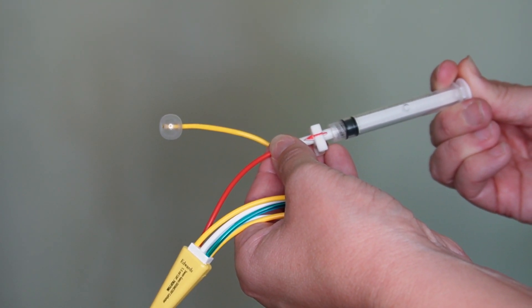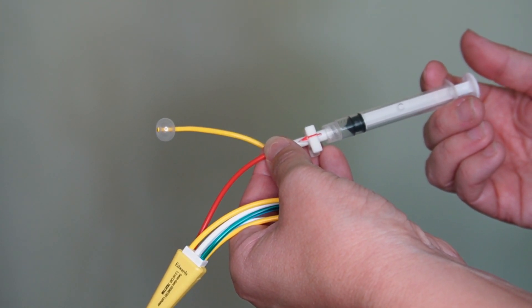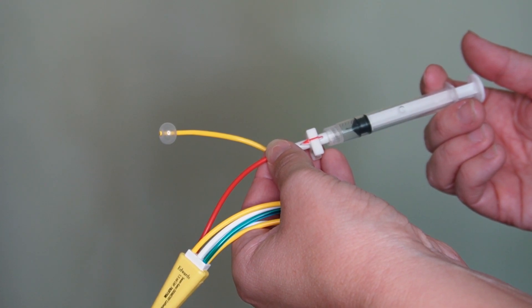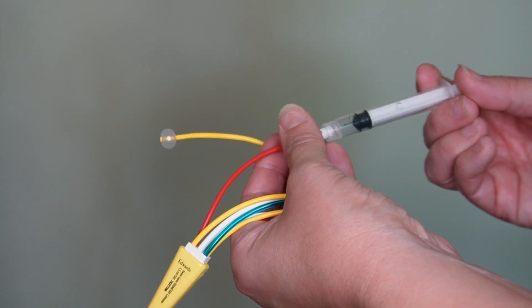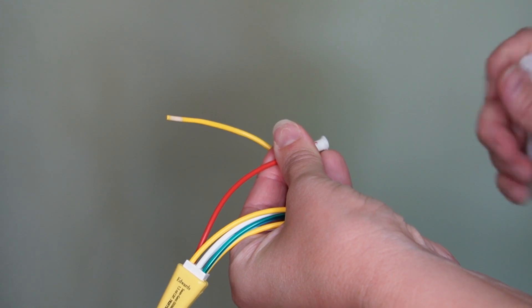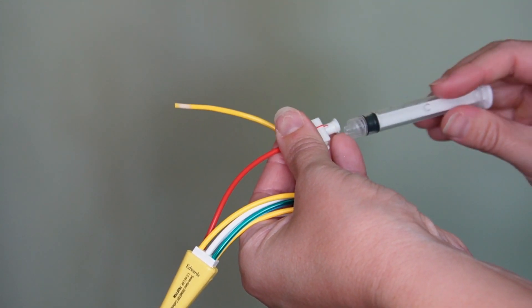The balloon serves two main purposes. Number one, it aids in floating the catheter to the proper position, which is terminating in the pulmonary artery. But it also allows us to obtain a pulmonary artery wedge pressure.